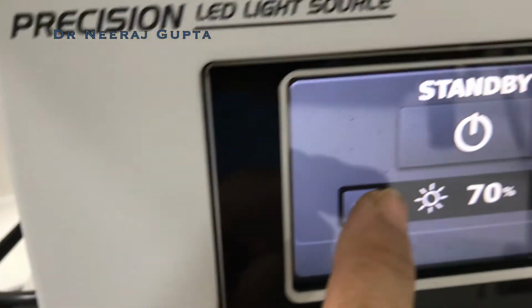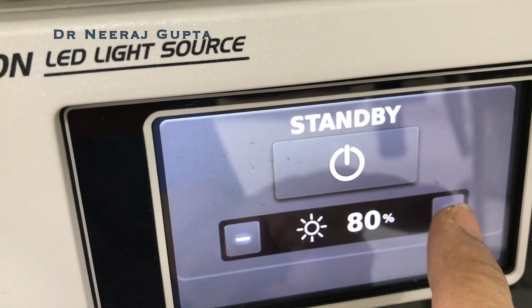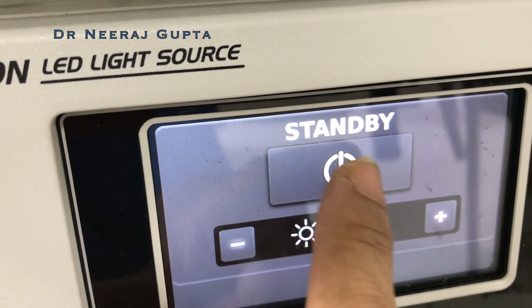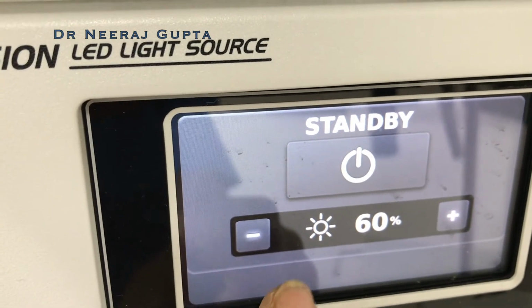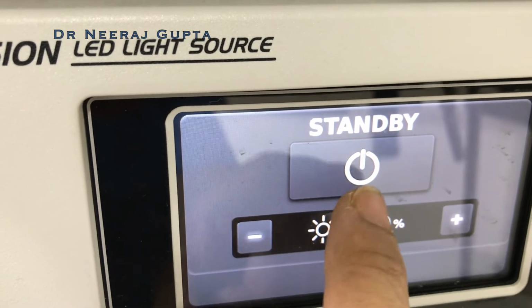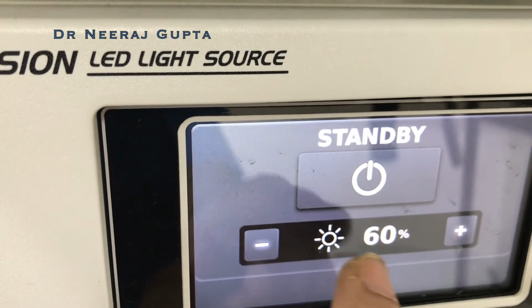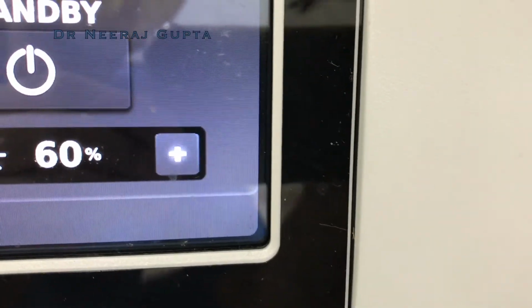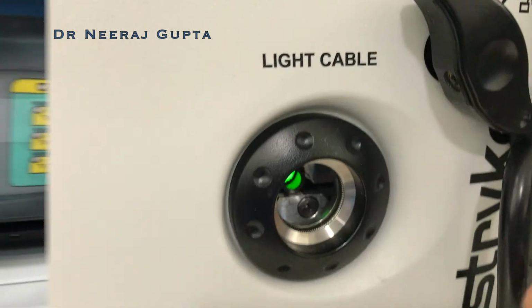Chances of burn to the patient are also less, so we can increase or decrease the intensity. When not in use, we put it on standby so that the patient doesn't get burned, and we still maintain minimum lighting, and as soon as we put the standby button off, we get the light. On the light source you can see that the light cable connection is there.